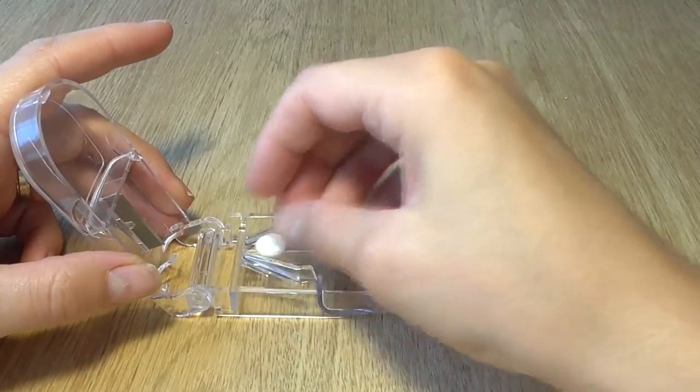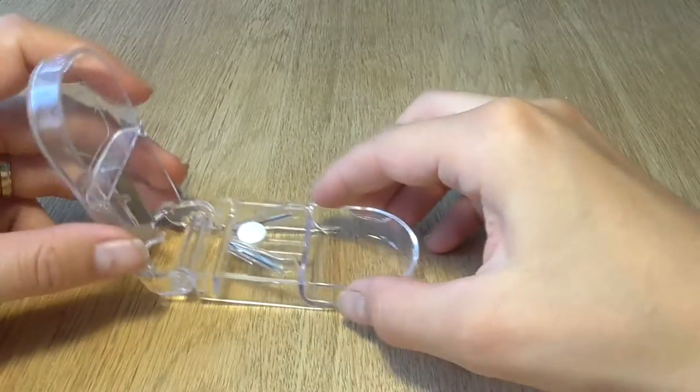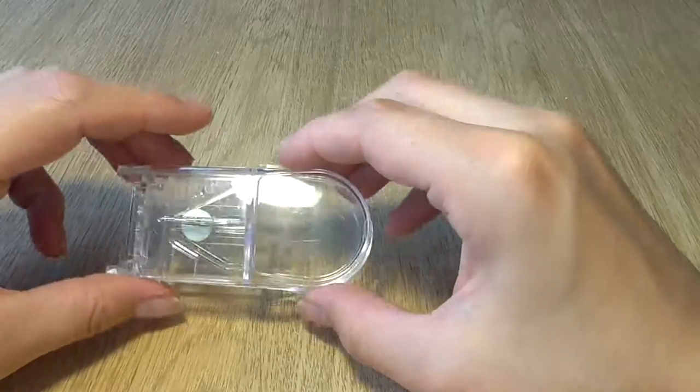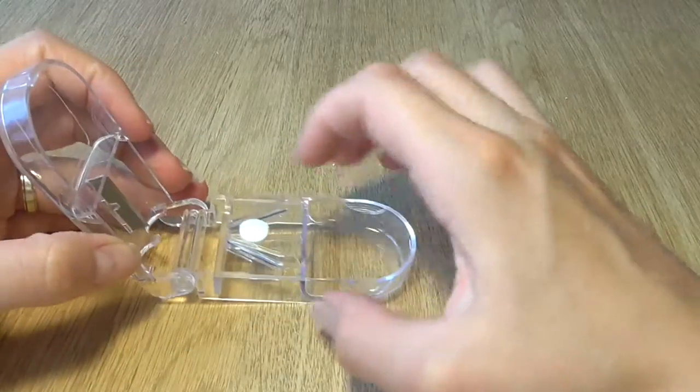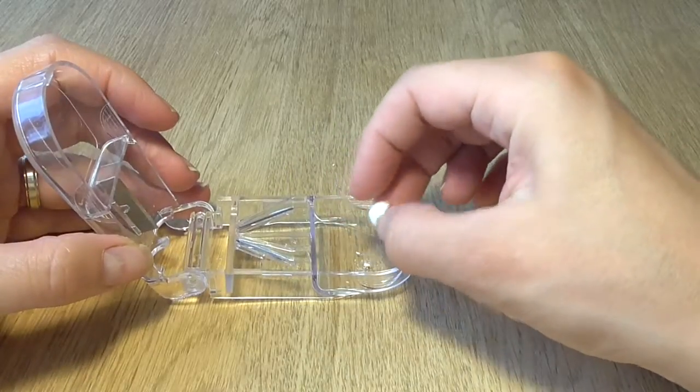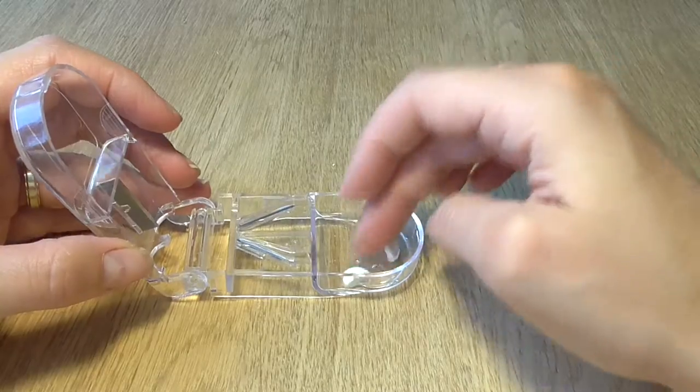Here we go! There, it worked! And you can store them in this small slot and all the crumbs are in the device. You don't need to clean your table afterwards.